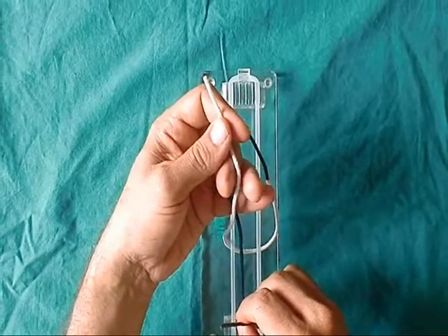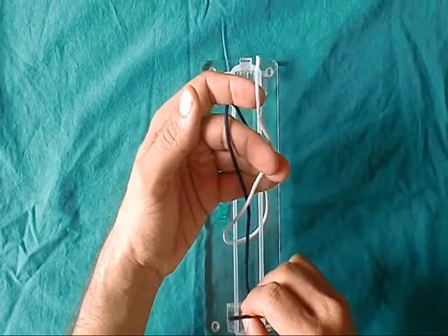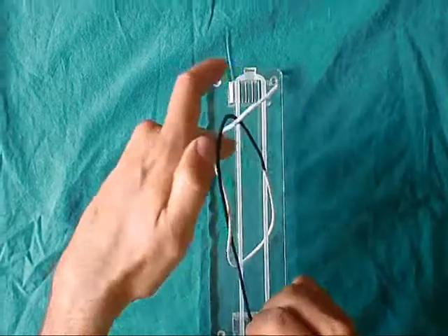Grasp the white thread with your middle finger and ring finger, and make a loop.